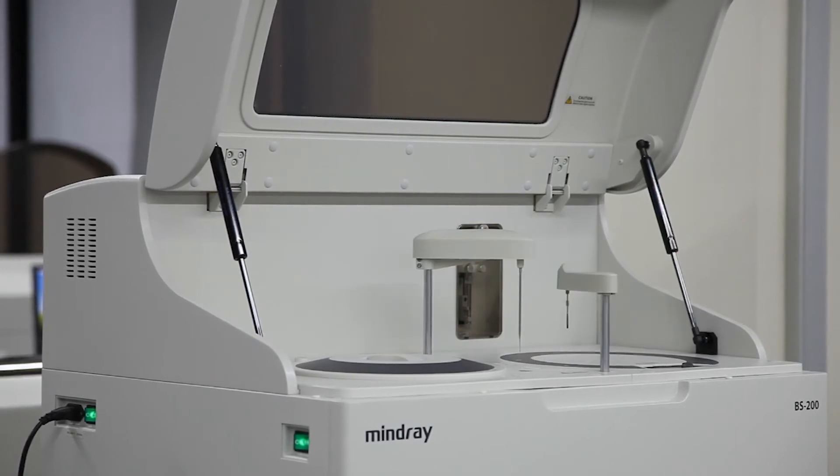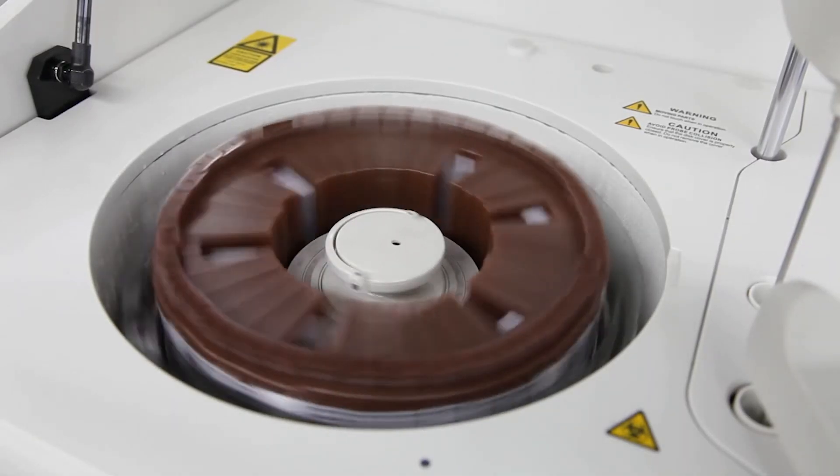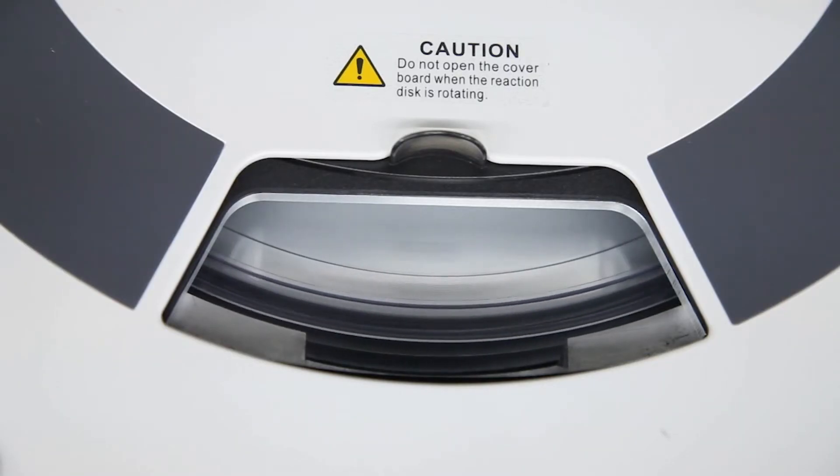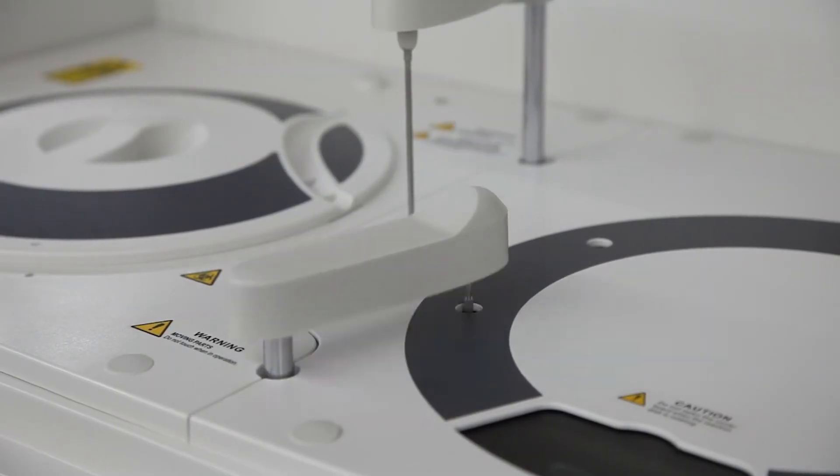The BS200 analyzer has a mean time between failures of at least 12 months. This unsurpassed reliability makes the BS200 the best of the best amongst its competition.